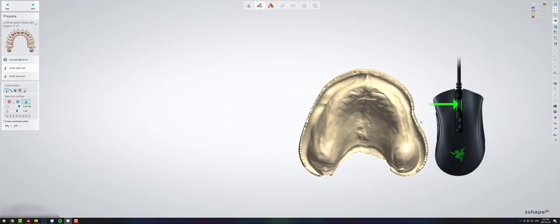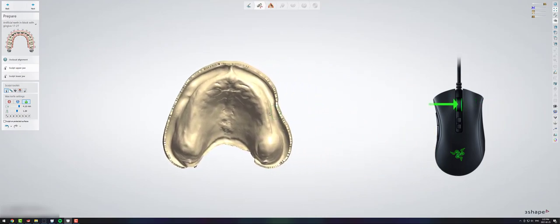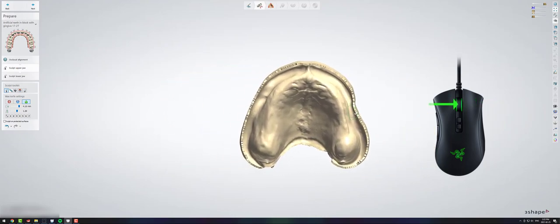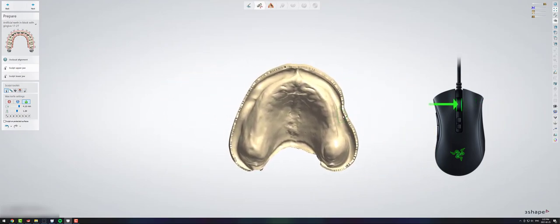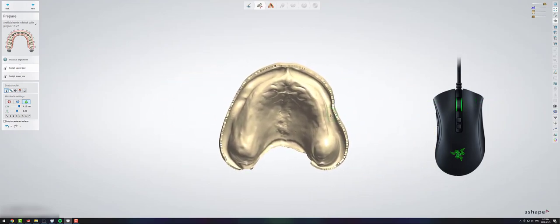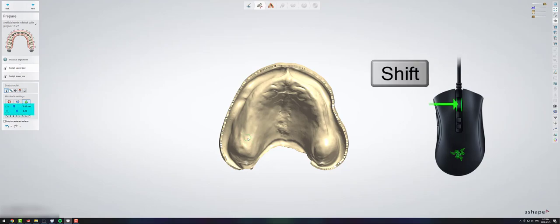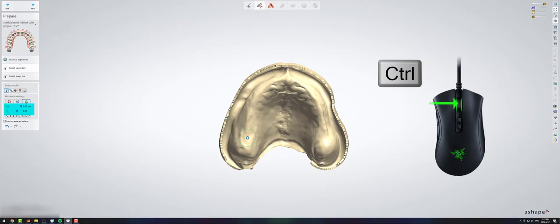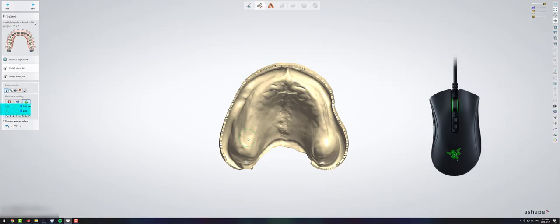If you're ever using the wax tool in the Sculpt Toolkit, you can hold shift and roll the rollerball and it will make your circle bigger and smaller. You can hold control and roll the rollerball and it will change the depth of your wax tool.